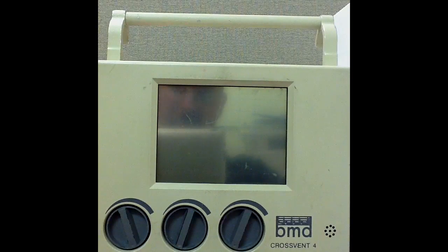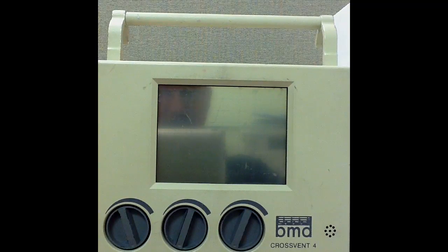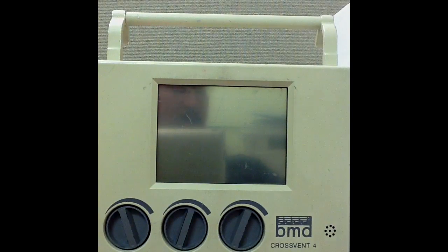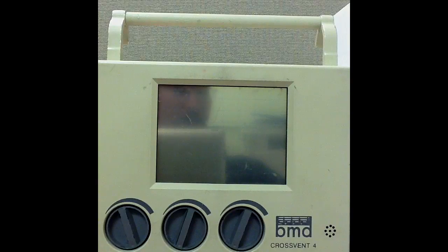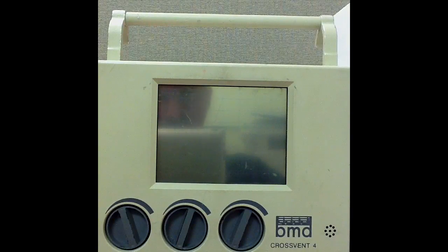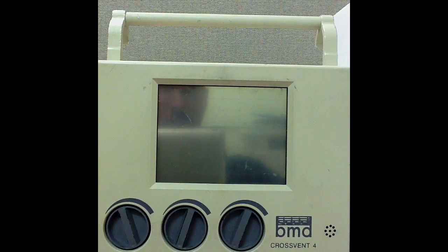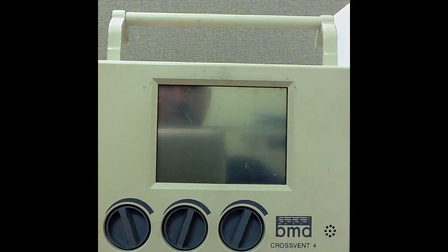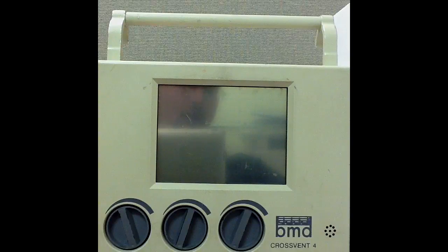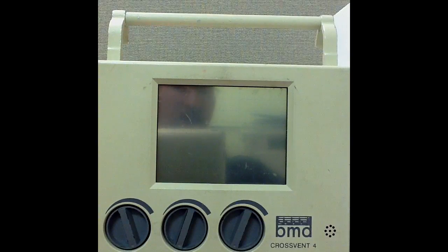Hello everybody, this is Chris back again with the Ancient Scholar. Today we're going to go ahead and — this is video 3 in a series of videos on the CrossVent 4 — we're going to go ahead and set this up for adult mechanical ventilation.